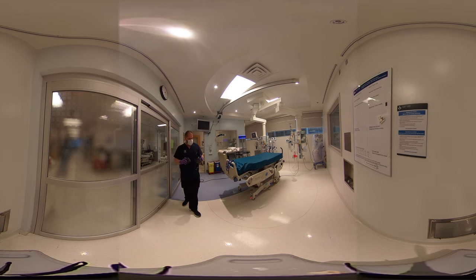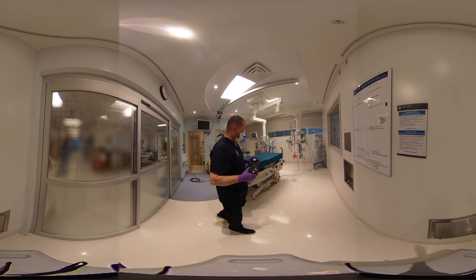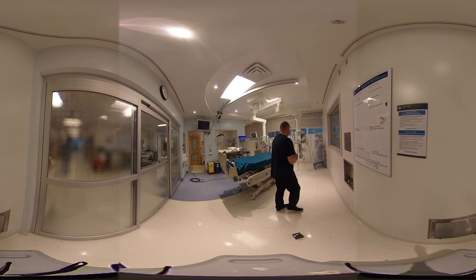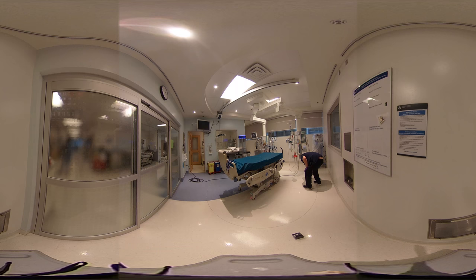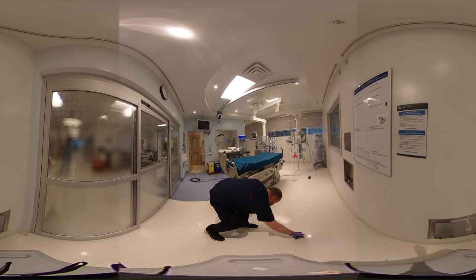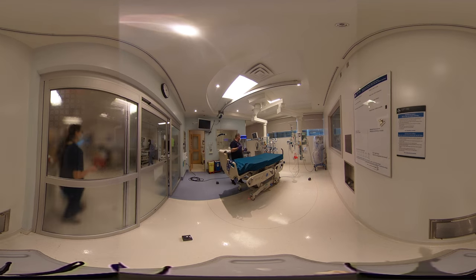The sensors plus the machine will operate, because I cannot be in the room once this machine is turned on. After the sensors have been placed and positioned, they should not be removed or moved as much as possible.